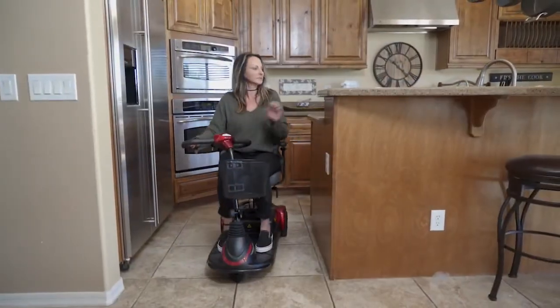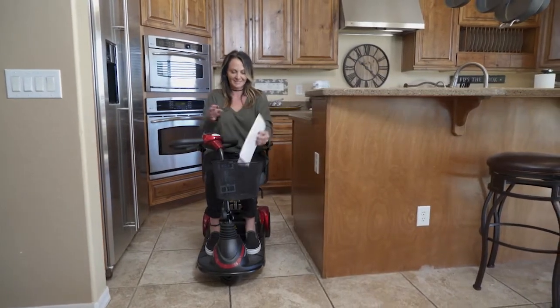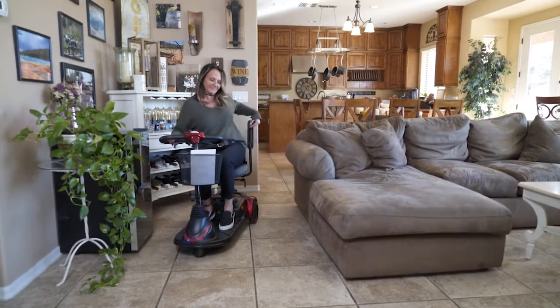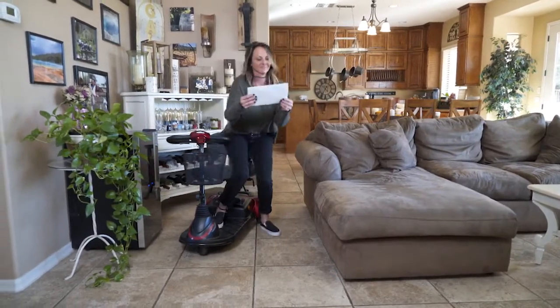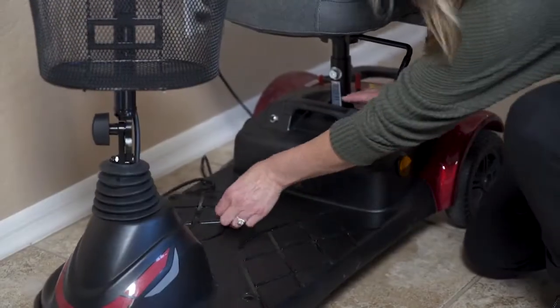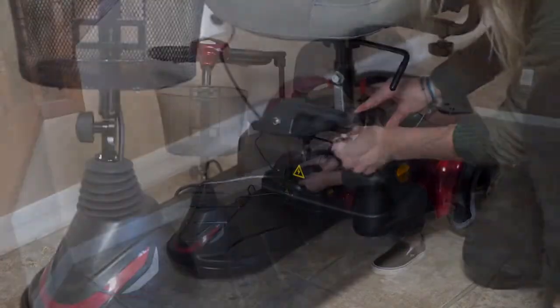And with a 9-mile operating range, the EWM40 will keep you going all day. With its super-efficient design, the EWM40 sets a new standard for both quality and portability and comes equipped with a heavy-duty removable battery pack, which can be charged on or off the scooter.